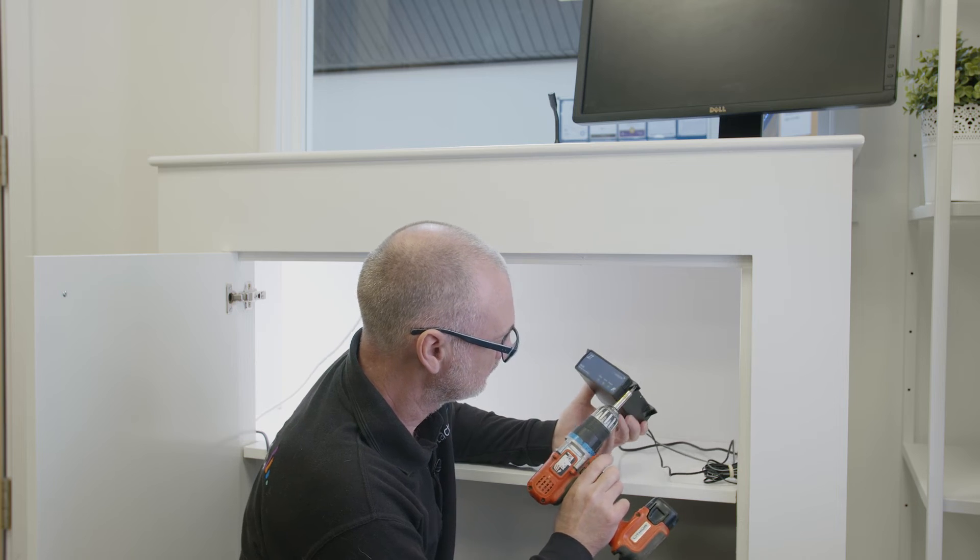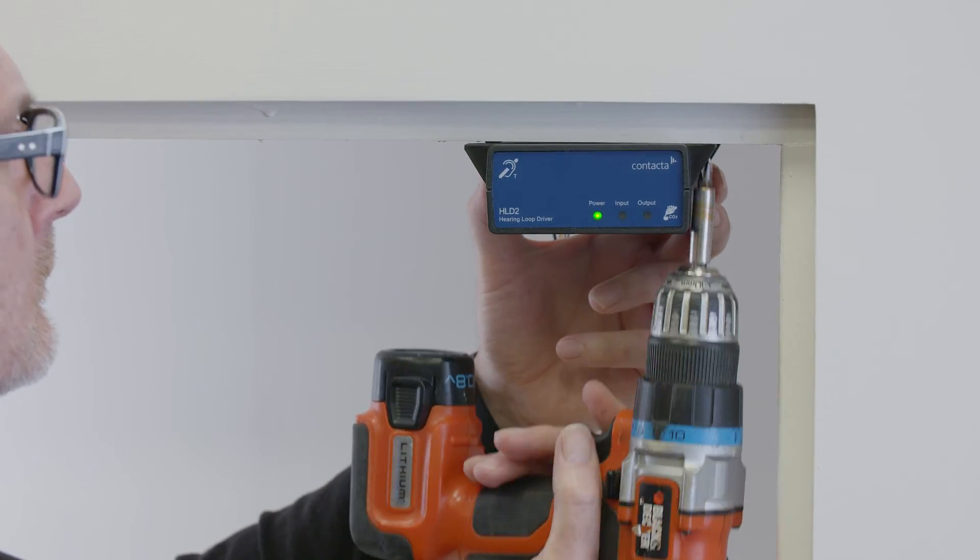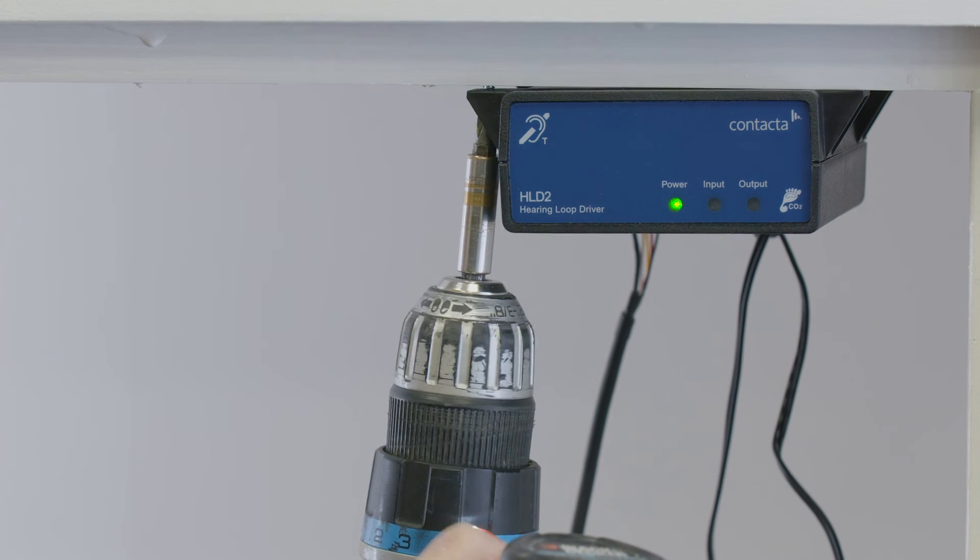Drill and fix the driver in place using the supplied screws. The driver's blue front should face outwards with LED lights ideally visible.